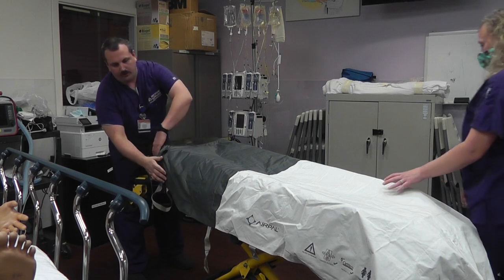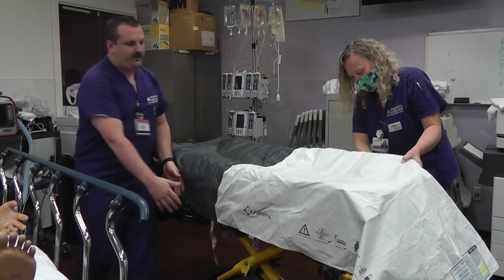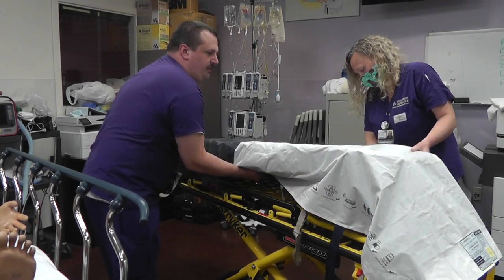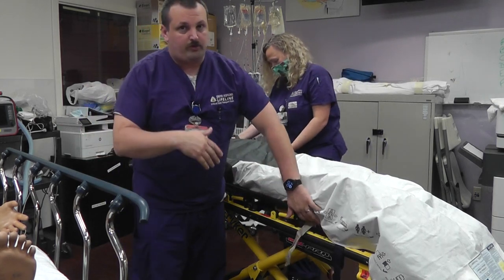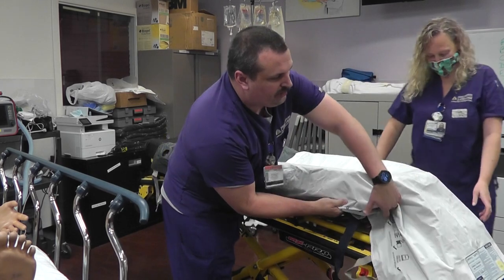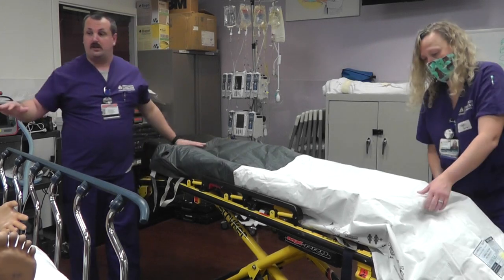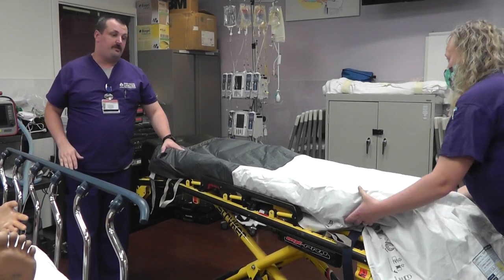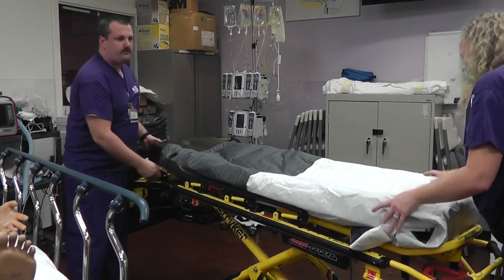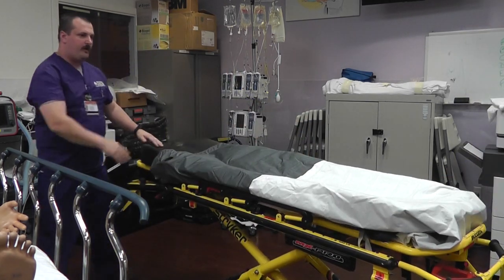We're going to make sure we tuck all the loose ends — we have all these straps and we don't want them getting caught in anything, so we tuck them all underneath the mattress. One thing to note: we're going to use the air pal in both prone-to-prone proning and when proning onto the stretcher. But you only put it on our stretcher when you actually prone onto our mattress. So if you're taking a patient that is already prone, you skip this air pal step and go straight to the sheet.